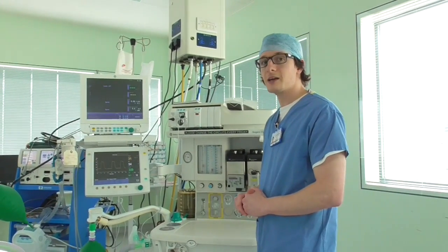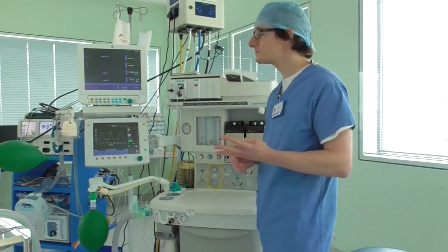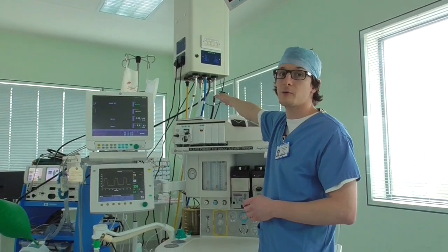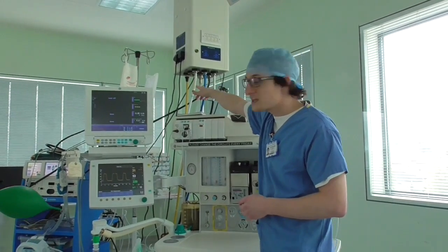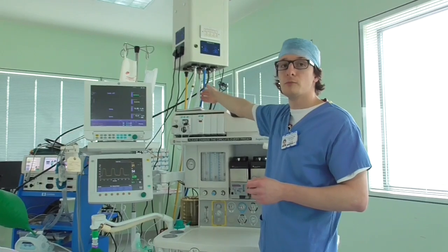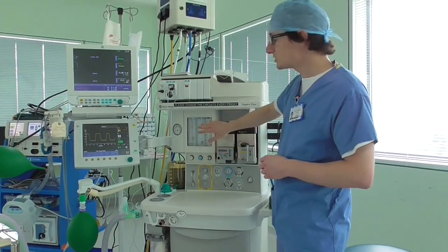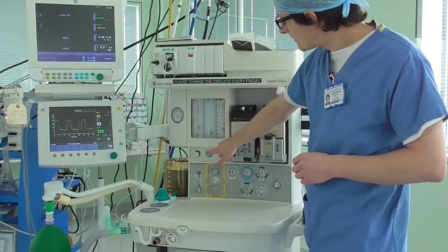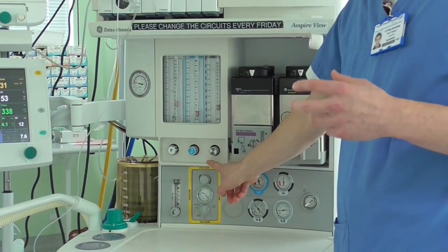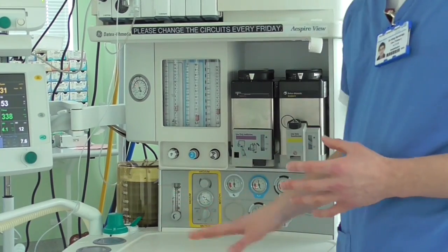The machine starts off by receiving a pipeline supply of four different gases: oxygen, nitrous oxide (also called laughing gas), and medical air, which is processed. There is also a yellow tube which is vacuum — it sucks instead of blows out — and the anaesthetic scavenging pipe, which removes waste anaesthetic gases. These pipeline supplies come into the machine through several safety features and are controlled with these three knobs here. Turning these knobs changes the number of litres per minute of oxygen, nitrous oxide, and air delivered to the rest of the anaesthetic machine.